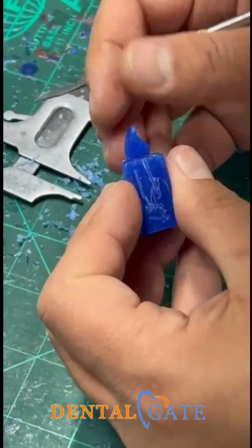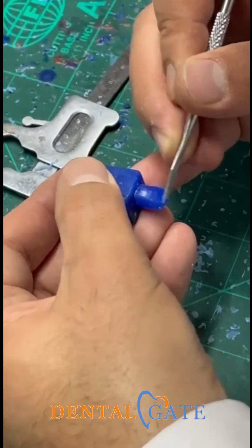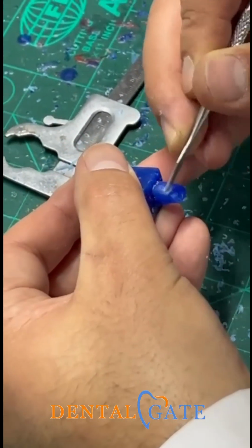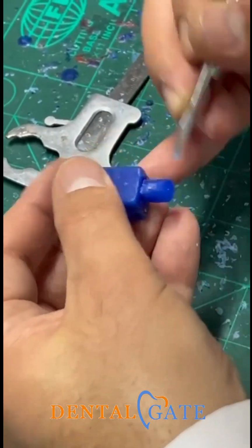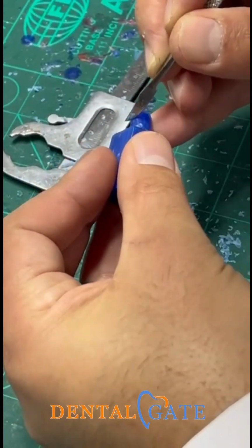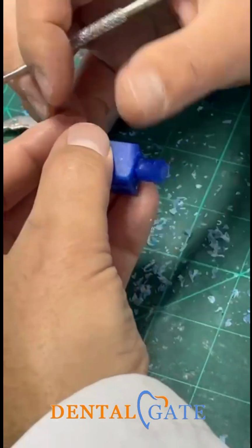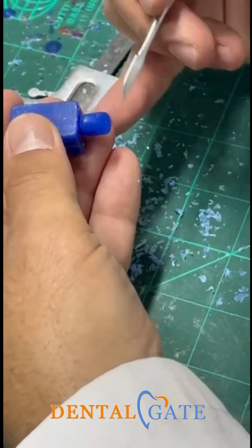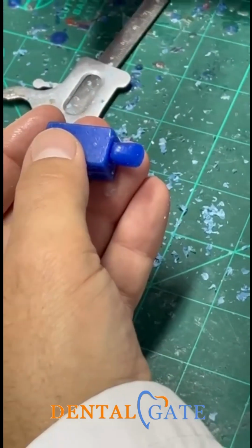Now, I can evaluate my labial aspect to grant a final shape of the lateral incisor at the labial aspect. You can see the lateral aspect should have a rounded shape, more roundation. So now we can make evaluation of what? Of the angles at the incisal edge. Make a double check to the roundation.